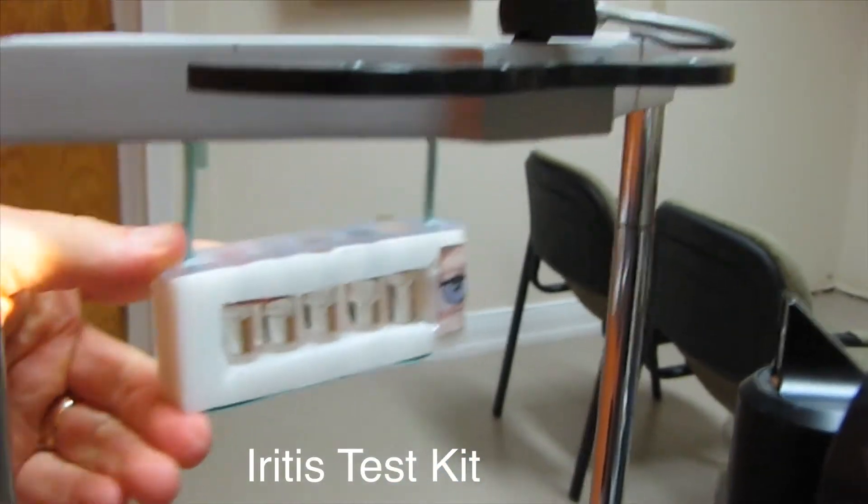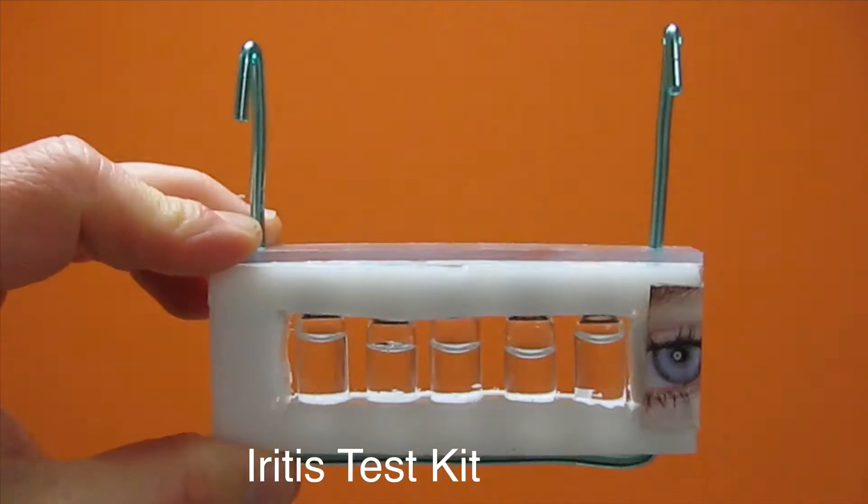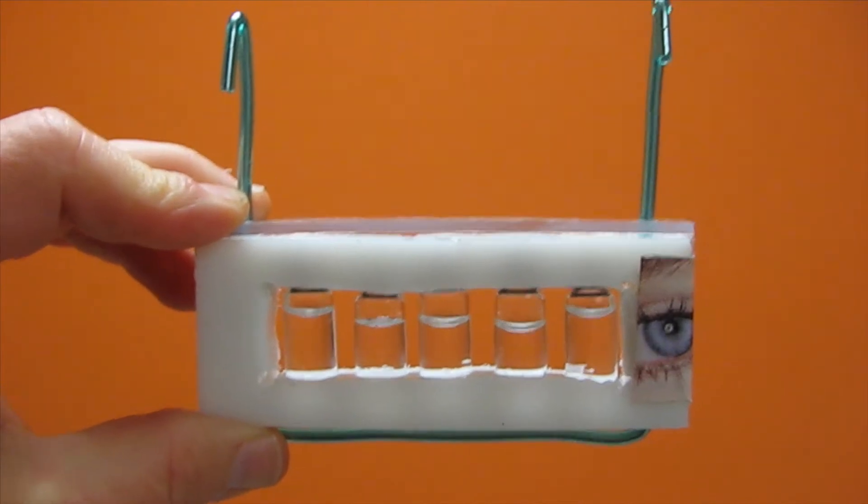This is the ABCD iritis test kit, and it has an image on the side to help you focus.